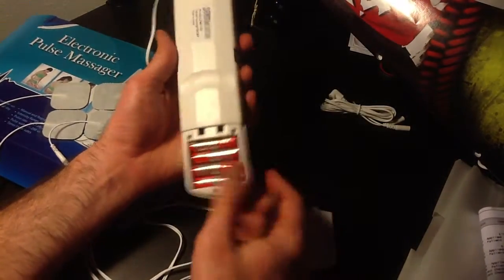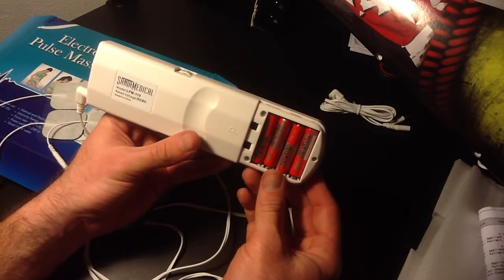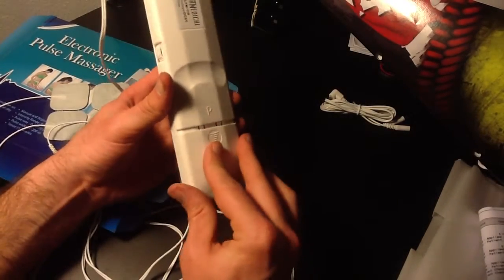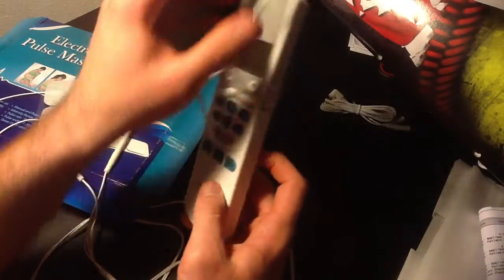It comes with batteries. You've got four AAA batteries. You can use it on two people at once, or yourself at once.